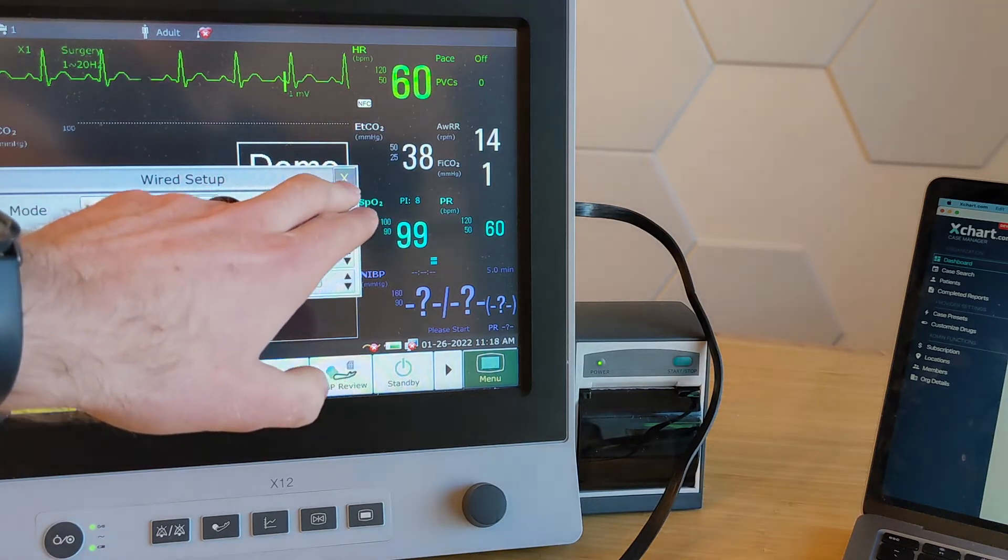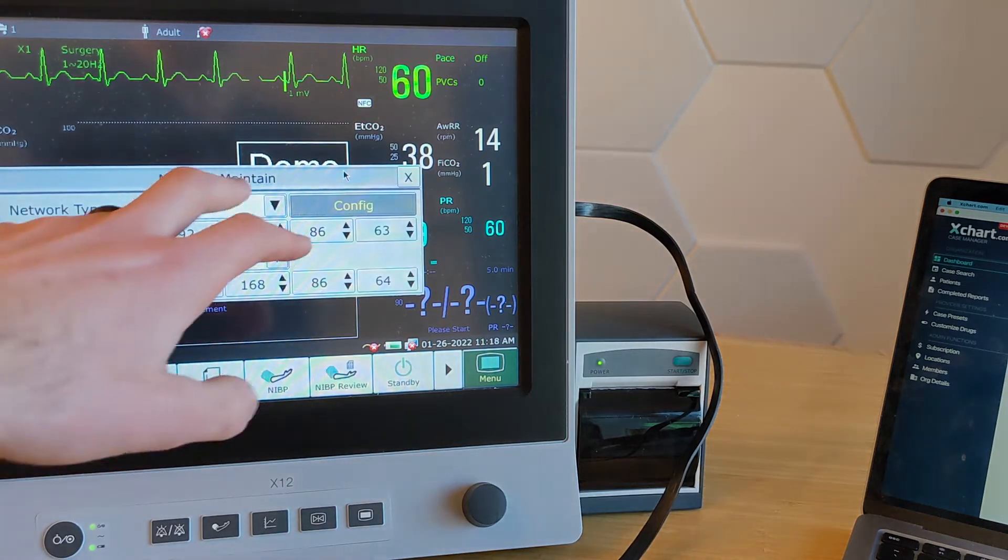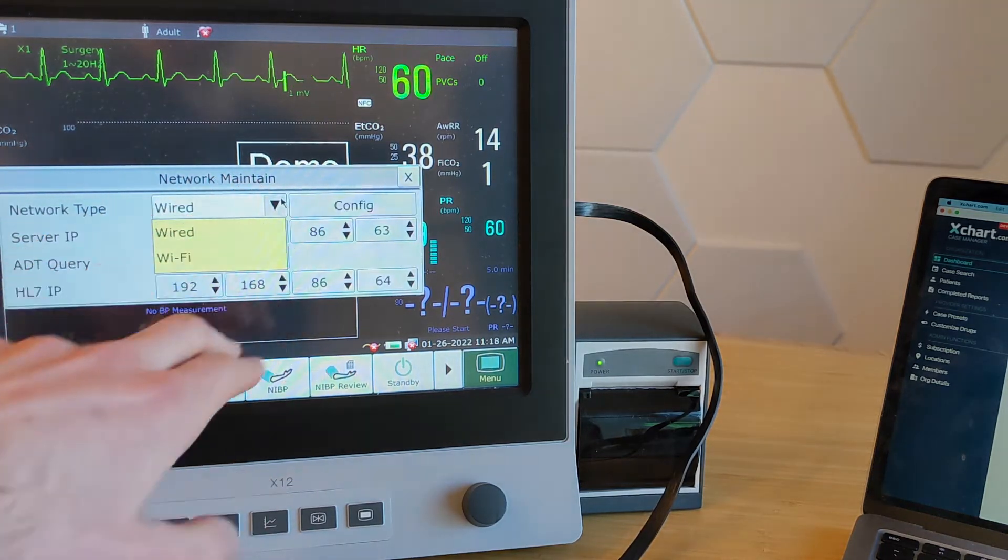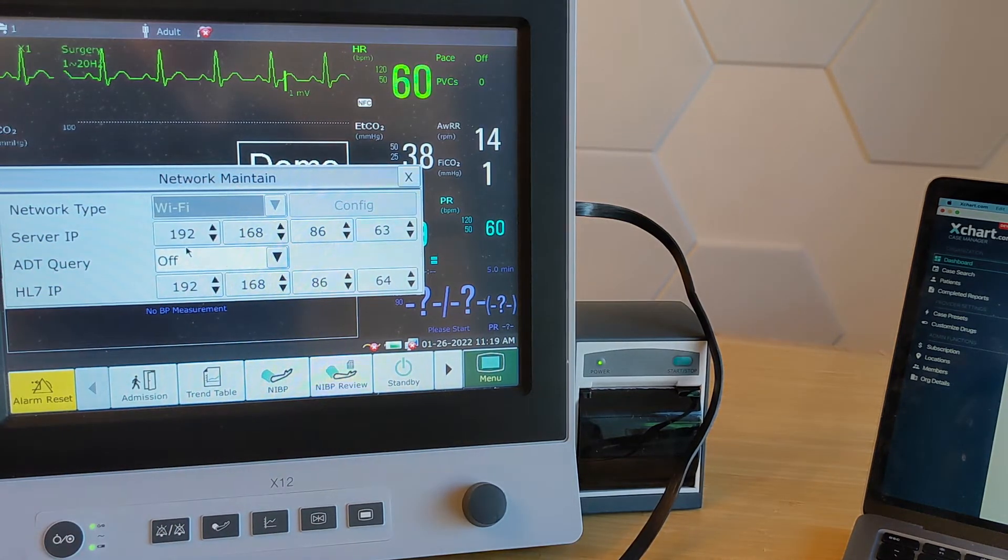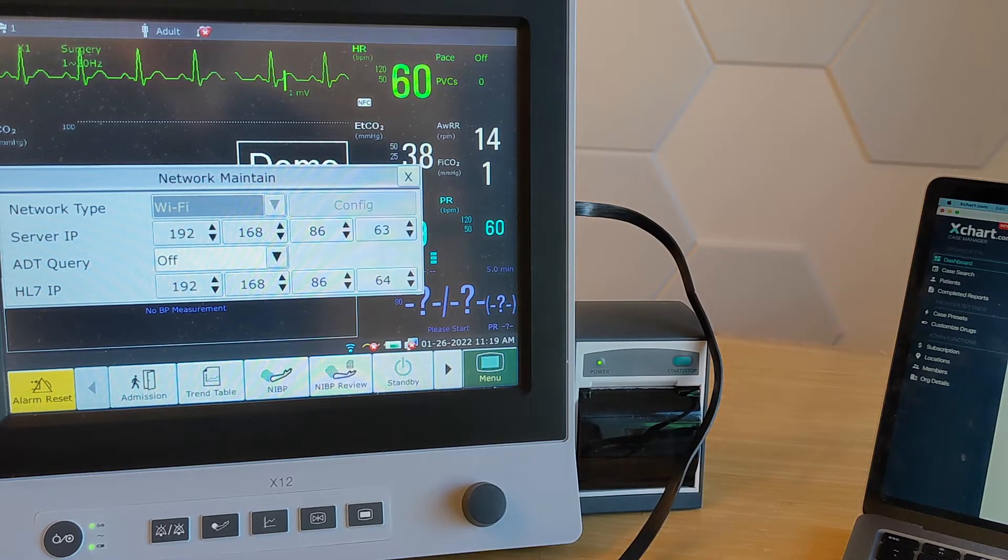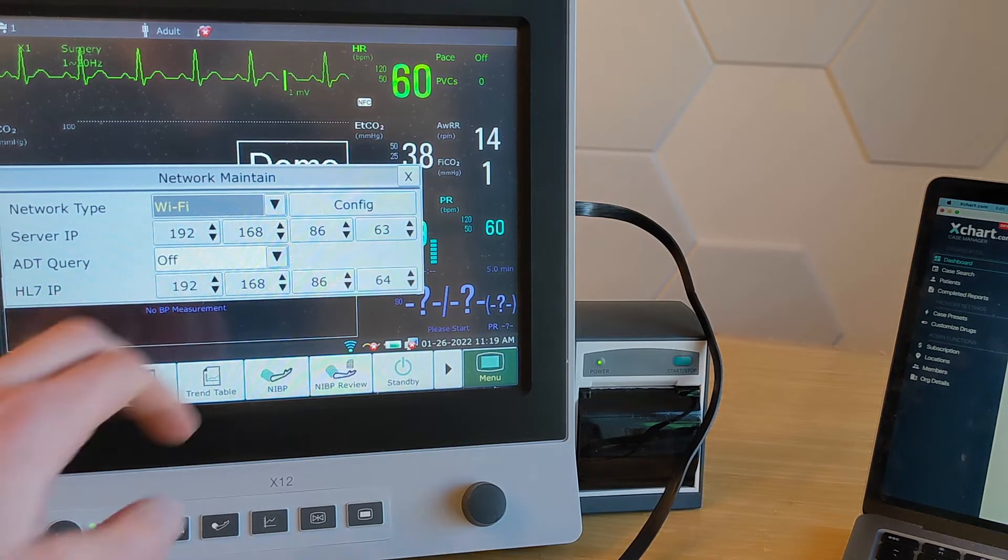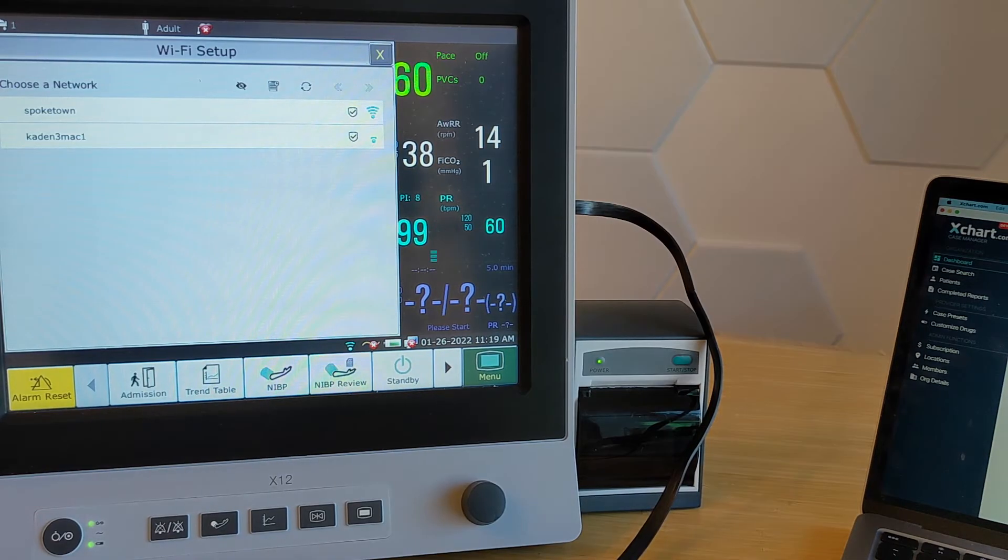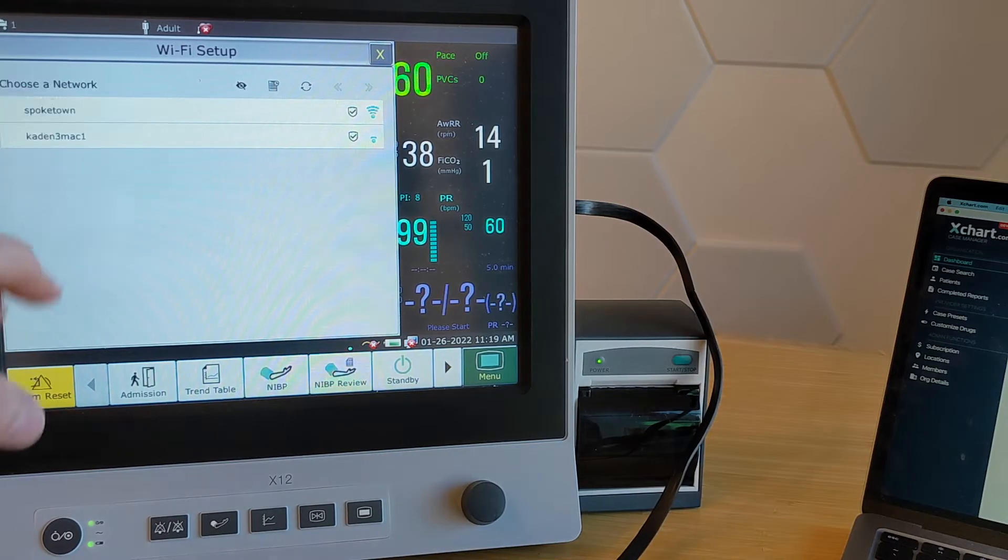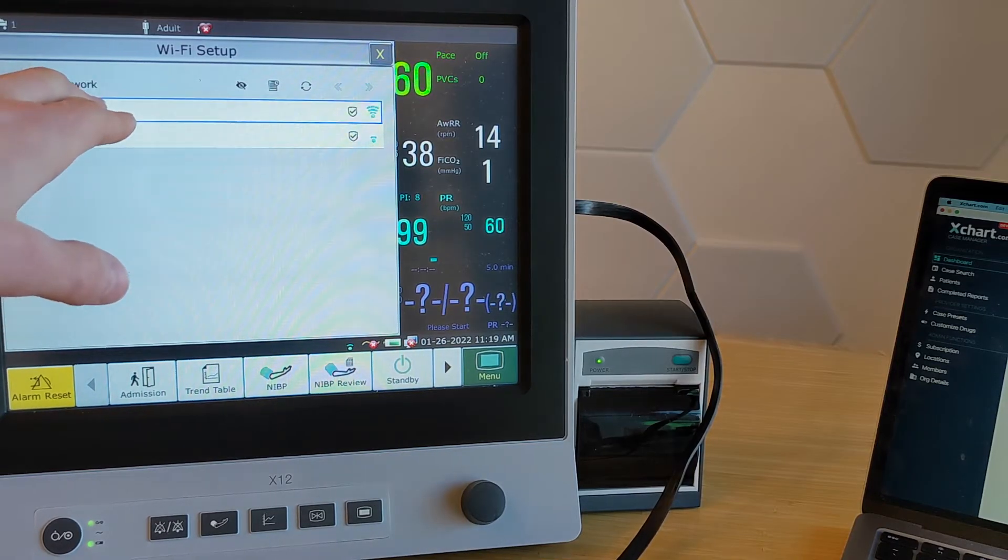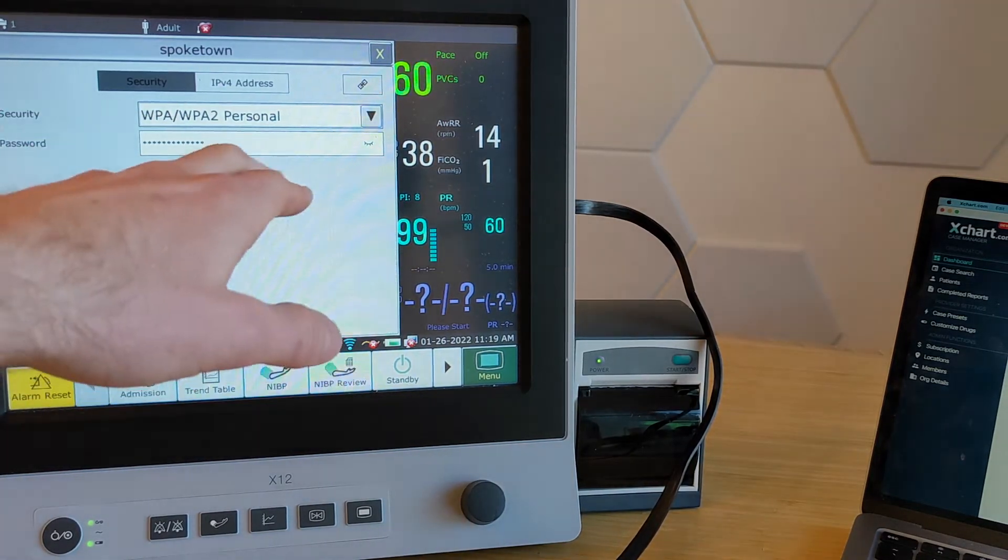The other option I'm going to show you is the Wi-Fi version. I'm going to go ahead and just switch to Wi-Fi. And it's going to be very similar. But now when we hit config, so when you first open it, it'll say, hey, what's your network names? So you find your network, go ahead and tap it, type in your password.